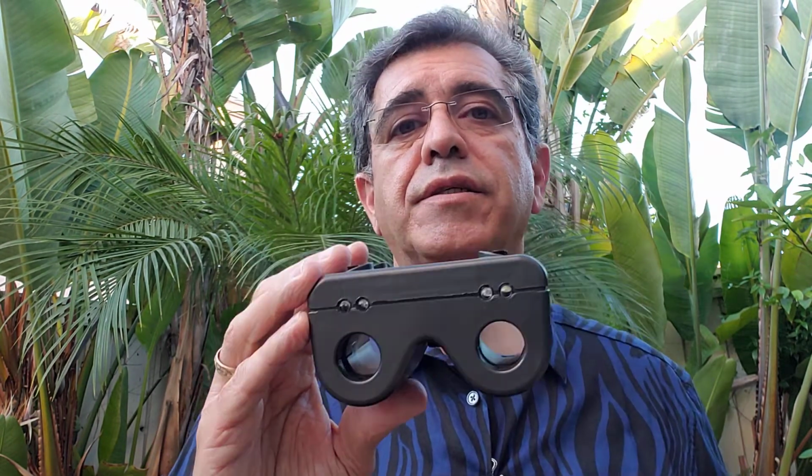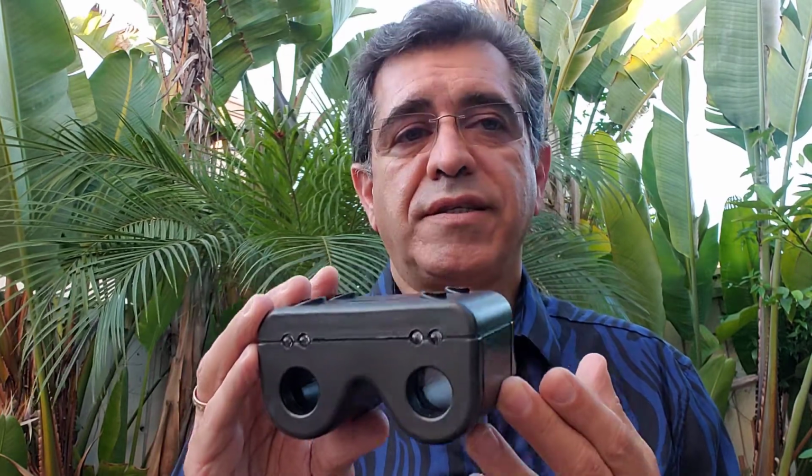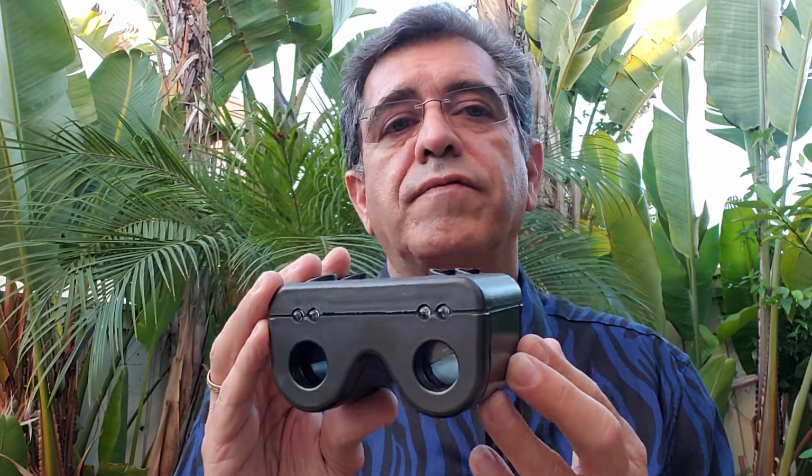Some clinicians may have a mild amblyopia or suppression or some other binocularity issue that could prevent them from seeing the two eyes equally well. If the amblyopia is not severe, the device still works for these examiners as well. Of course, if the examiner is blind in one eye, then they would rely on the traditional swinging flashlight test.